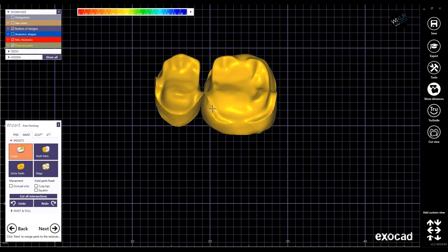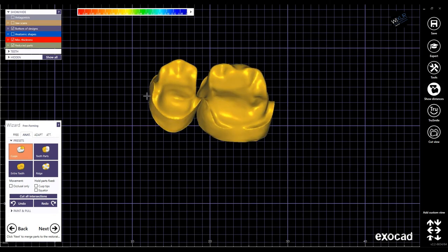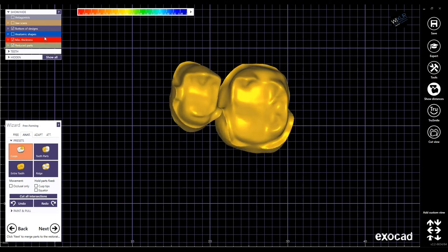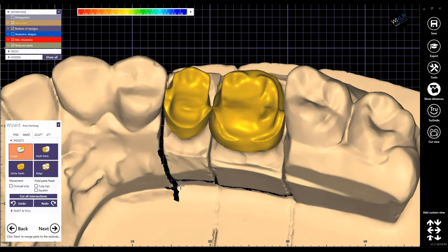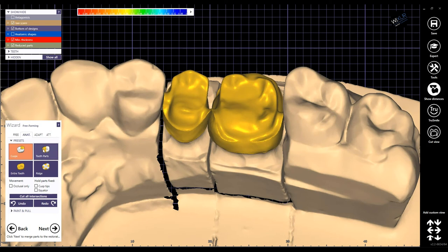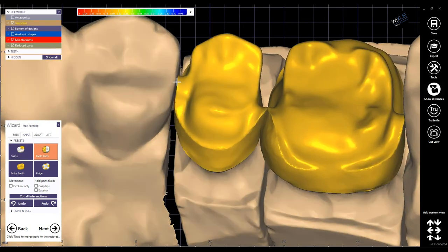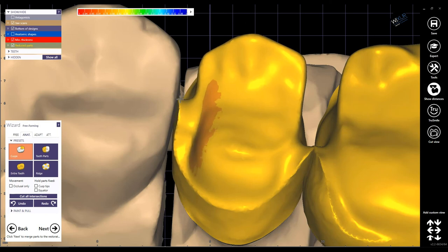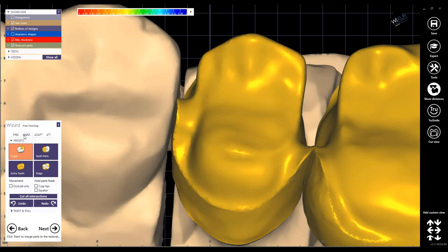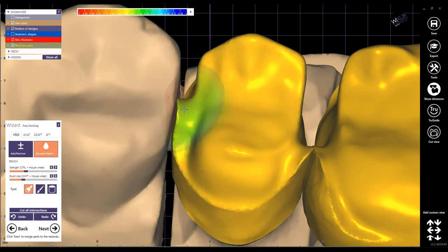These are my restorations, completely reduced, and only the lingual band is left. So the final step will be some free-forming to complete the design, and that's it.